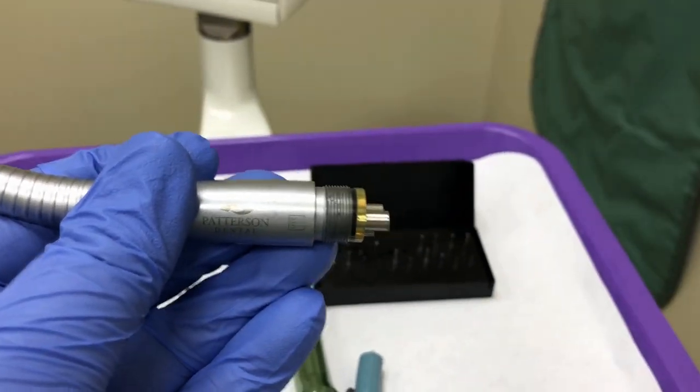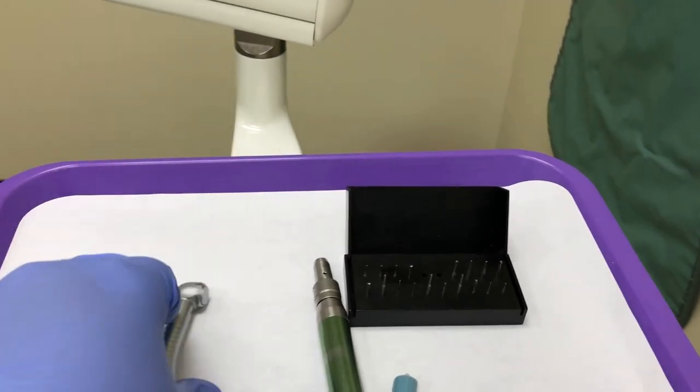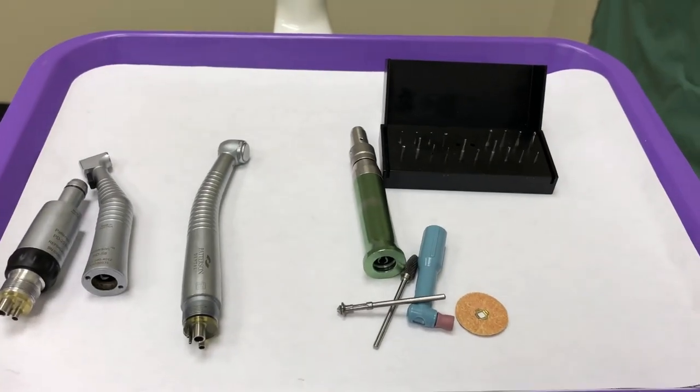Always follow your manufacturer's recommendations when it comes to maintenance and care of your handpieces.